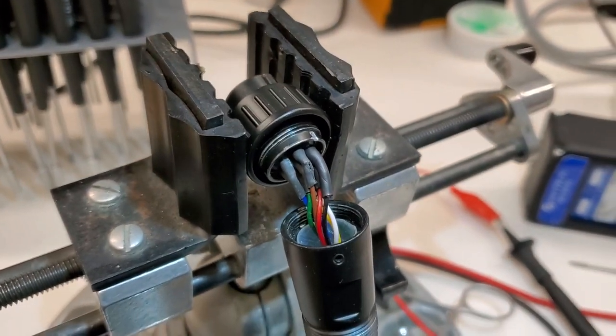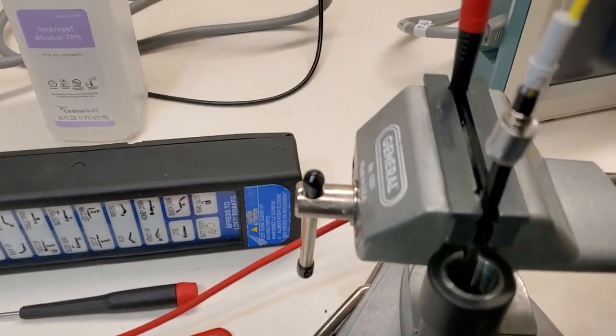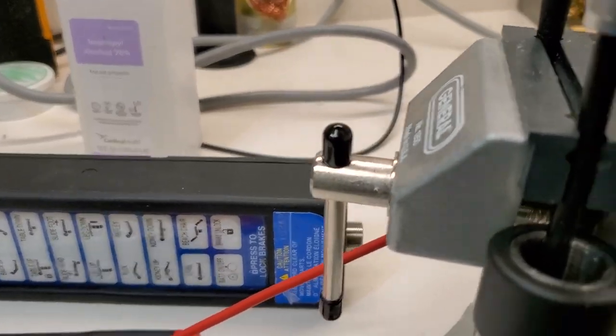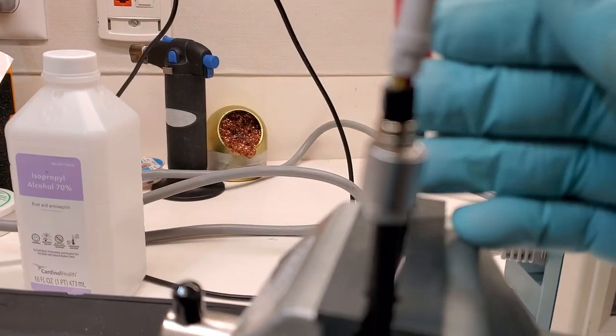You can see I've got the connector apart right here. The cable has no visible damage. Usually the problem that we find is right up here. Let's see if I can get it.